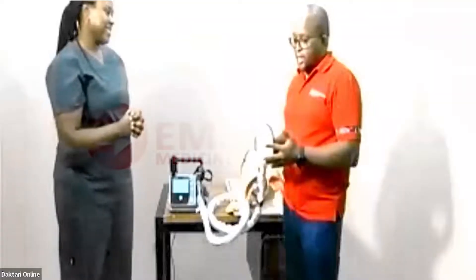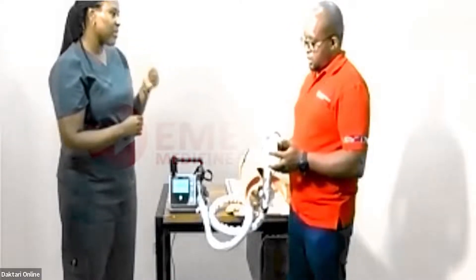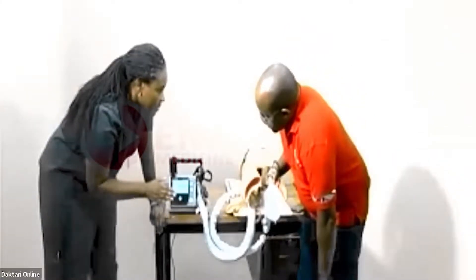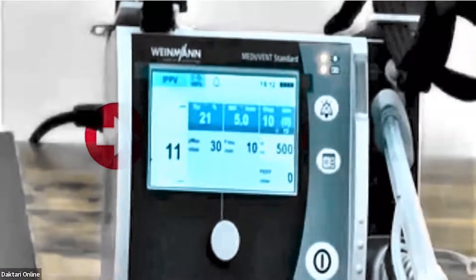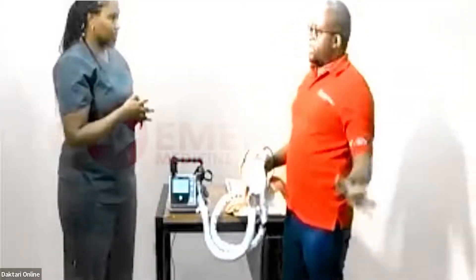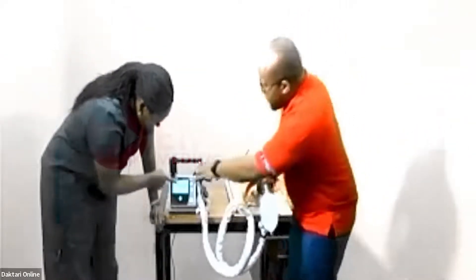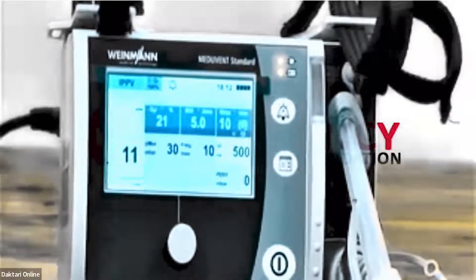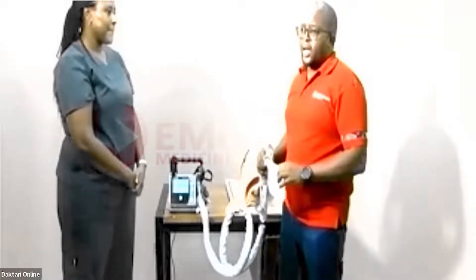The first thing you want to set is oxygenation — the most important thing is to give your patient oxygen. When you start a patient on ventilation, always start at 100% oxygen (FiO2 = 1.0), and then wean down based on how your patient is improving. If you do a blood gas and your oxygen levels are adequate, you can always come down. So start at 100% FiO2.